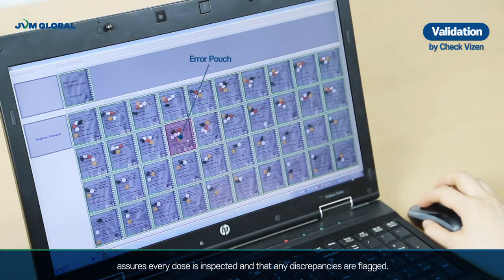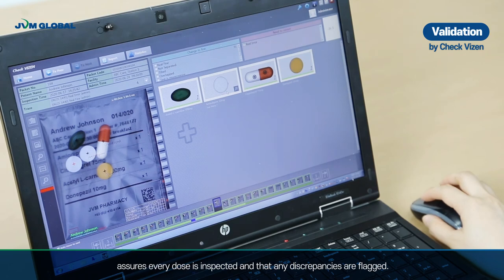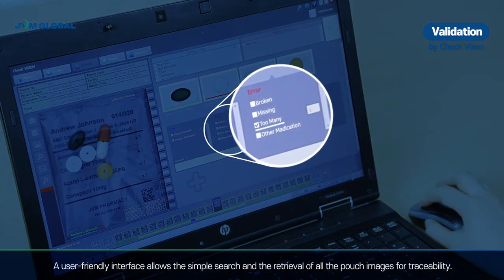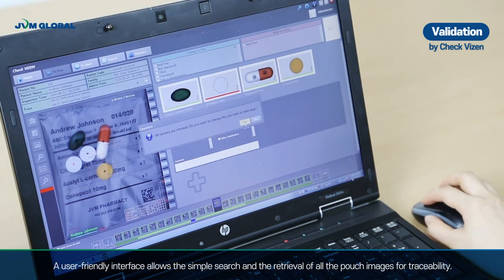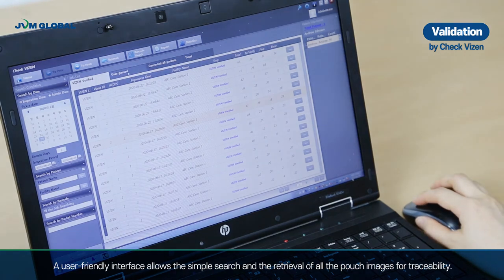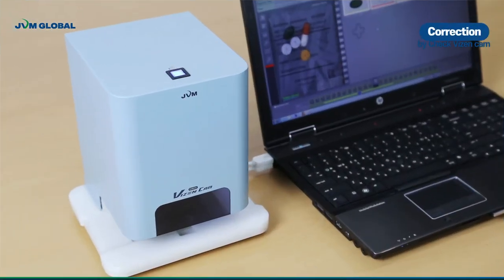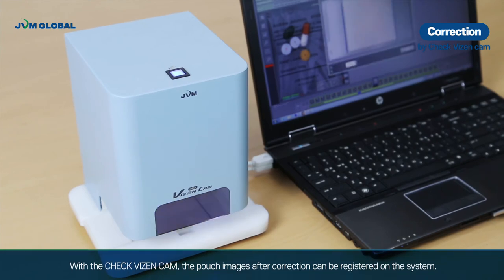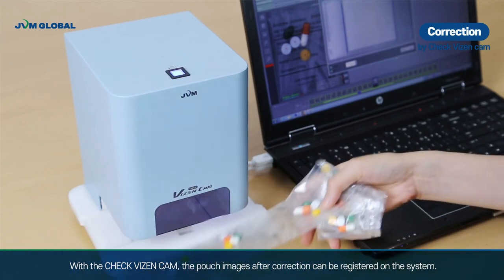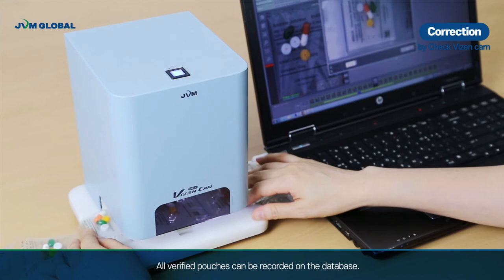Vizen assures every dose is inspected and that any discrepancies are flagged. A user-friendly interface allows simple search and retrieval of all pouch images for traceability. With Check Vizen Cam, pouch images after correction can be registered on the system, and all verified pouches can be recorded in the database.